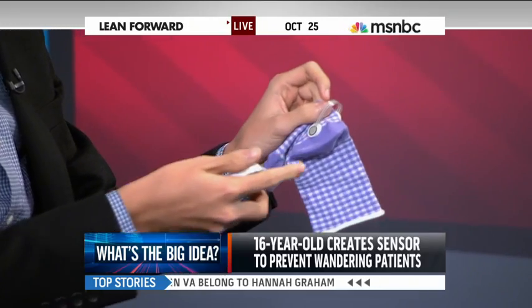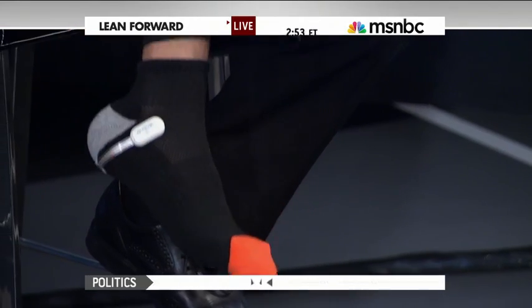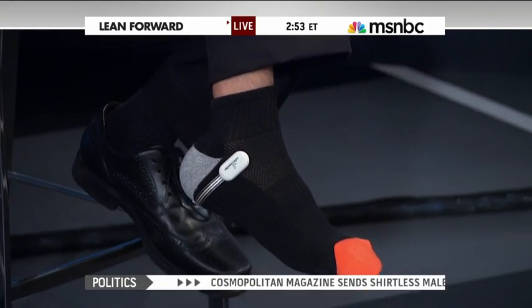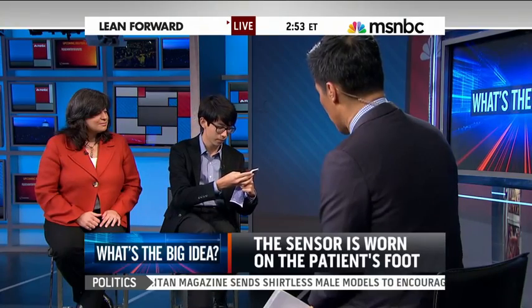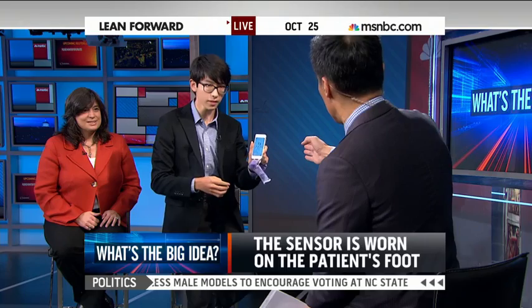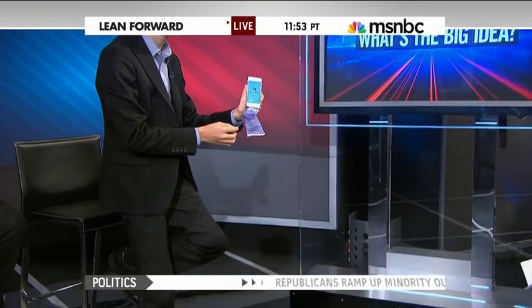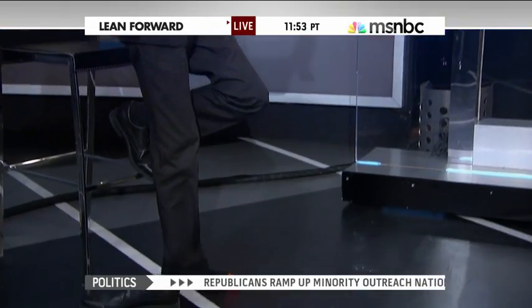Is it just a sticker? It's a sensor — you can put it on any sock with Velcro. So you've got one on your foot. Once you connect it to your smartphone and you stand up, it sends a signal. Just go ahead and stand — once you put your foot down, it sends a signal, and it just did that. It says 'off the bed' on the app. So it's that simple.